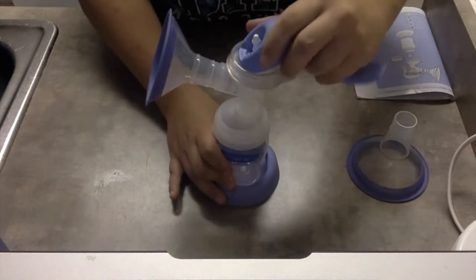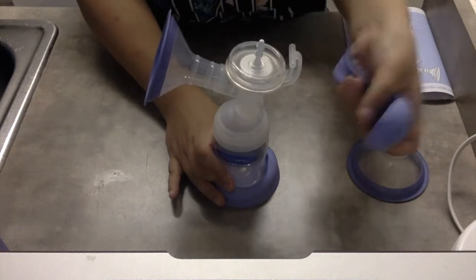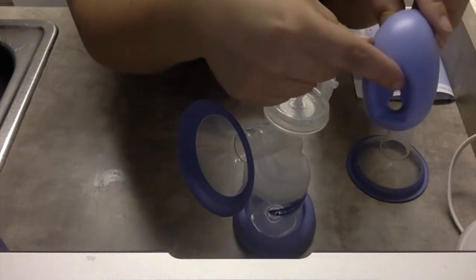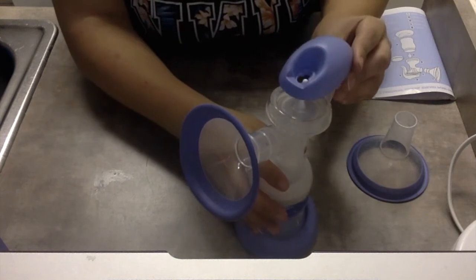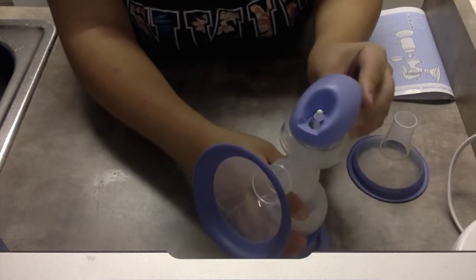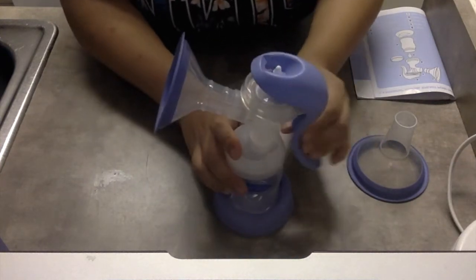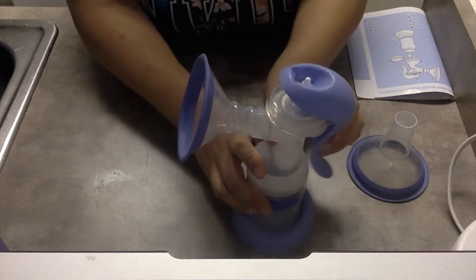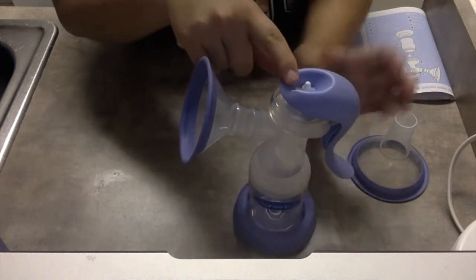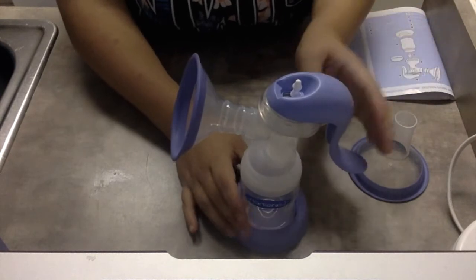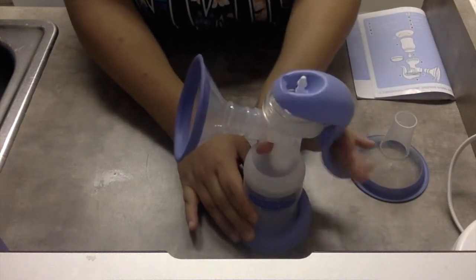So I will repeat again. It can be a little tricky, you have to play with it sometimes, but there's a big hole and a small hole. The small hole is what you're going for. You put it on the first one at the top and it connects. And once your milk is going and starts dropping, you push down, it pops, it clicks really. And then your milk is flowing.